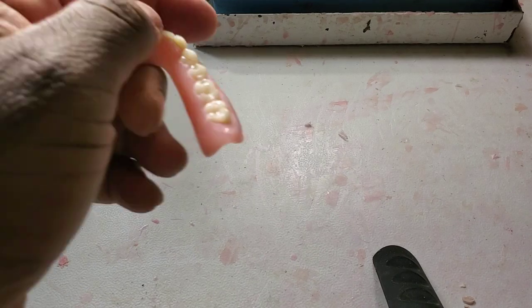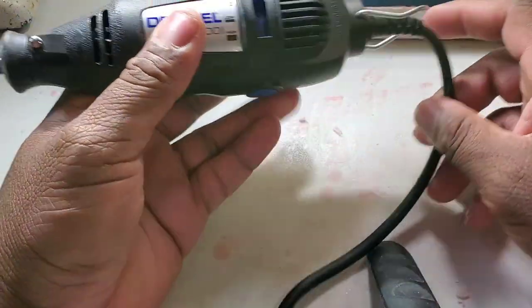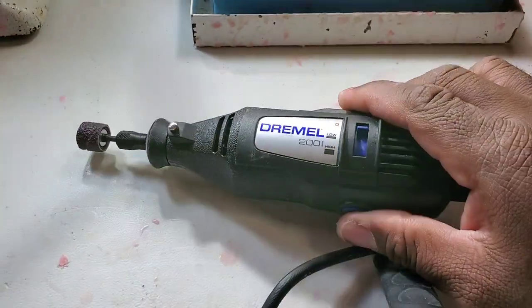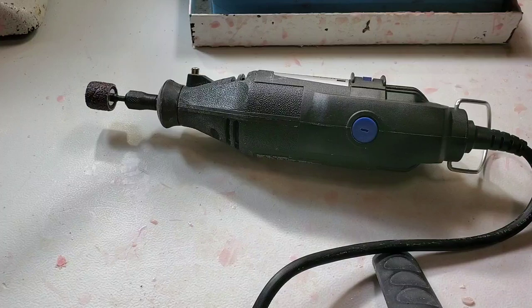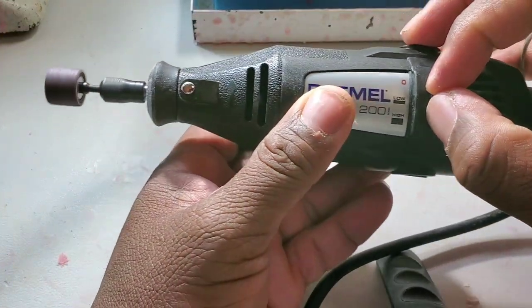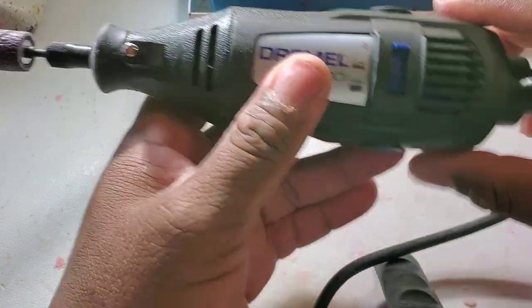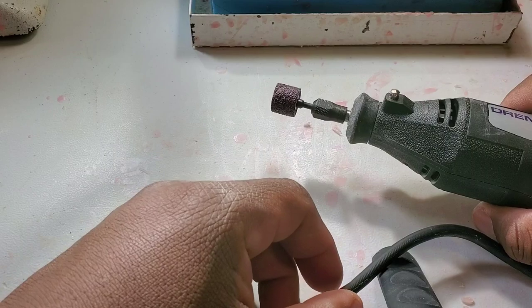I'm going to show you how to first use this instrument. It's simple — it is simple to use. It just has a button. First, I have to plug it in, and then it has just a button for low and then high. I never put it on high because too high vibrates a lot. So you might have to even wear your face mask now because it's going to create a lot of dust when you're working with this.